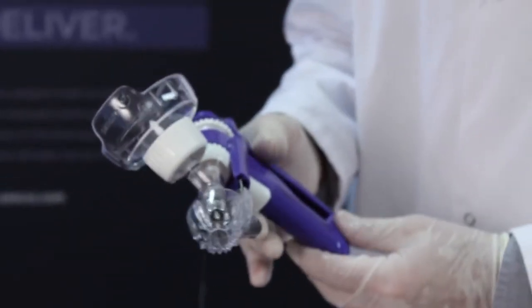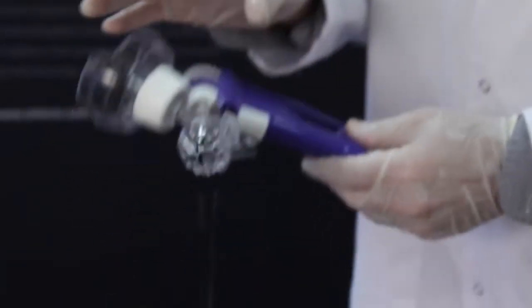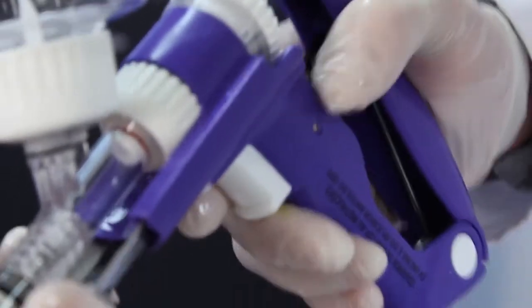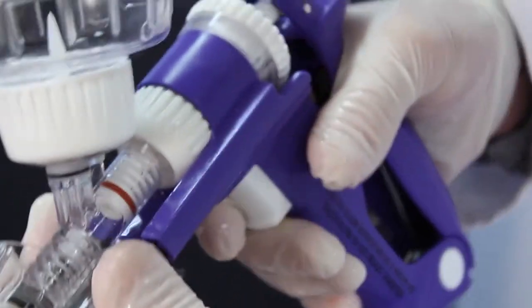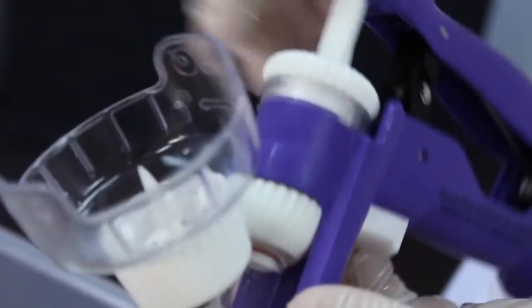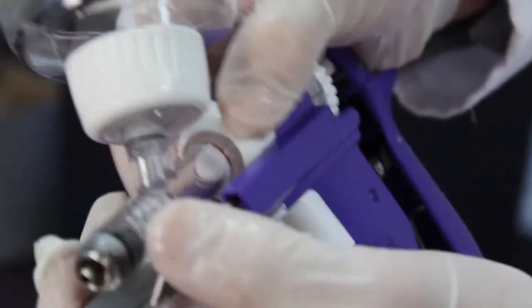There is a little bit of maintenance that you can also do on this injector. There's a little o-ring inside the barrel which is pretty key when you're pushing the product through — it helps that plunger slide nicely through the barrel, so we want to keep that nice and lubricated. Simply remove the needle guard and, to take the barrel off, use this nut here and unscrew that.